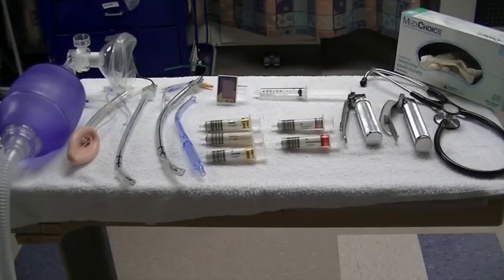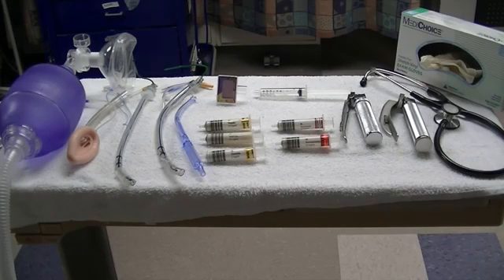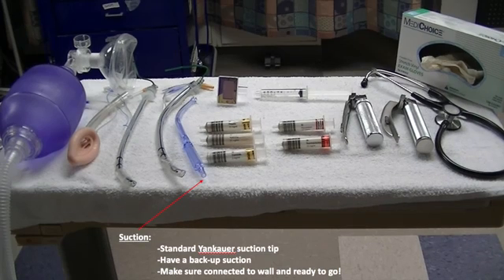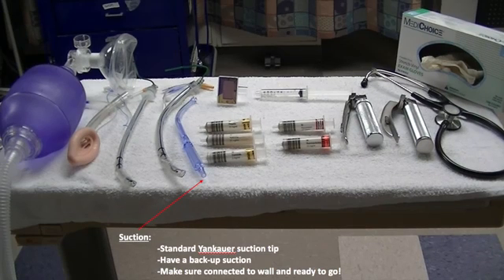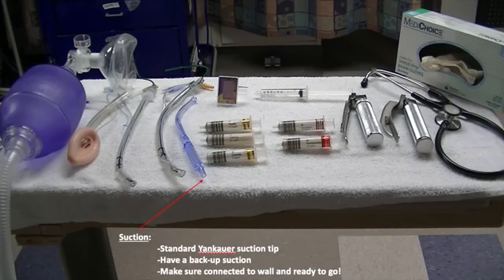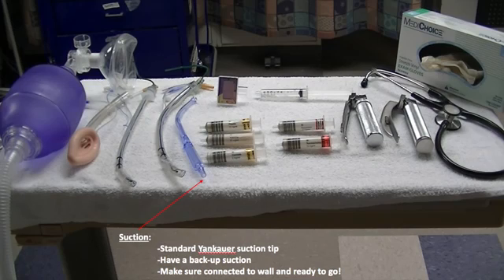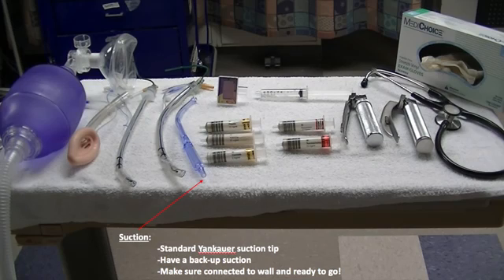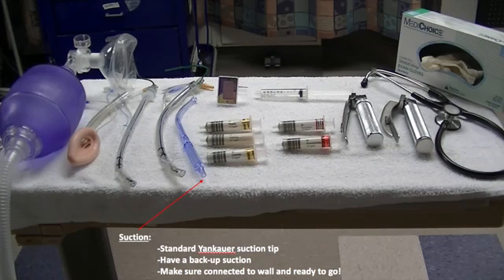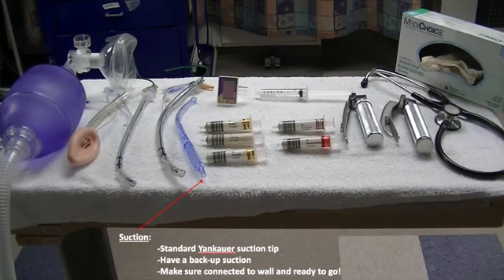This is a pretty standard layout of your airway equipment. Using the mnemonic, let's start with suction. What you see is a standard Yankauer suction tip. It's a good idea to have the suction plugged into the wall, turned on, and ready to go before you start intubating. It's also a good idea to have a second suction tip at hand in case your first suction fails.